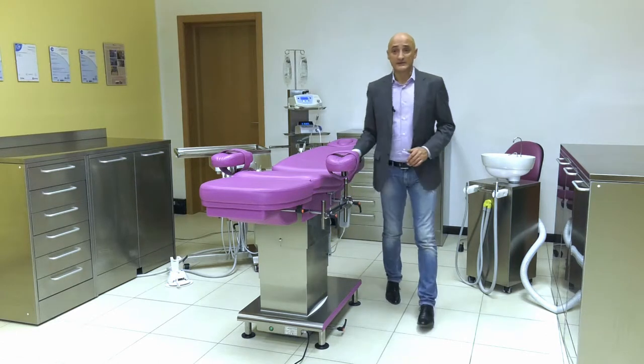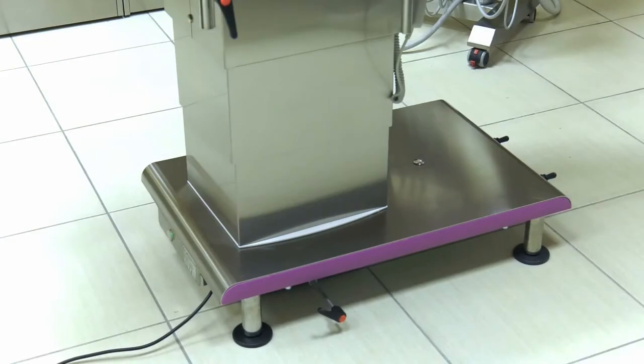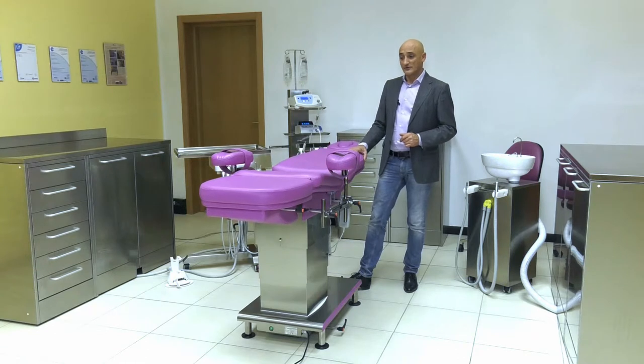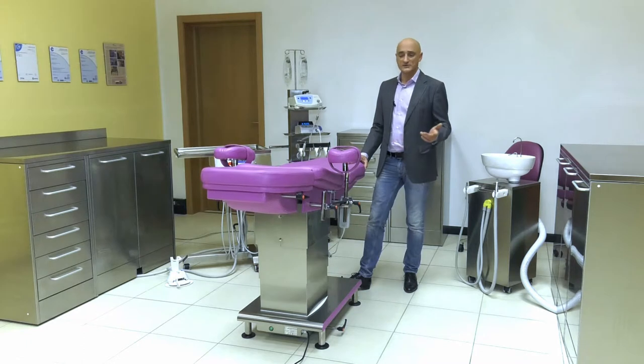Note how the column of our chair is able to lift up to 200kg. The other foot lever allows us to change the inclination by 10 degrees into the Trendelenburg or anti-shock position.